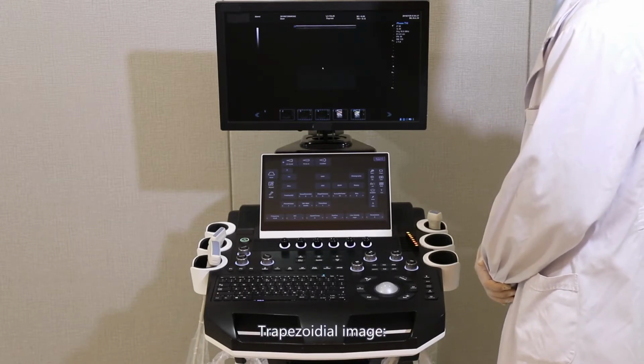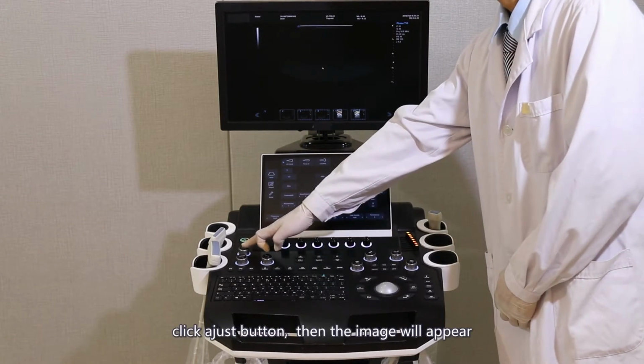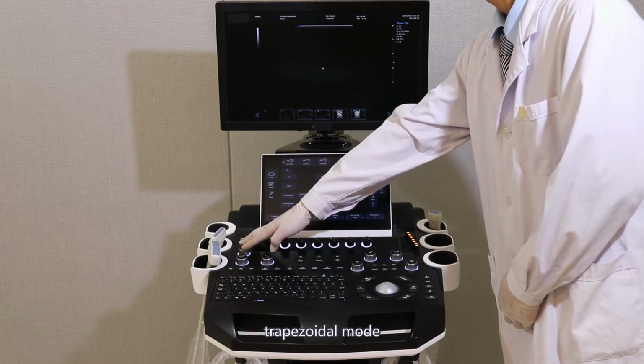Trapezoidal image. On the linear array probe, click the Adjust button. Then the image will appear in trapezoidal mode.